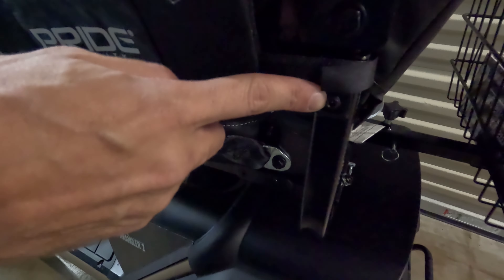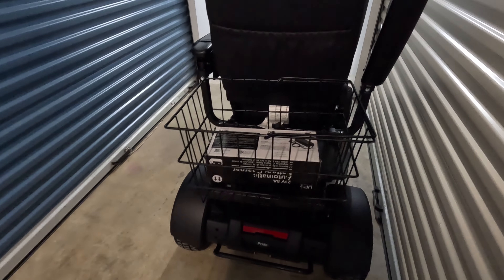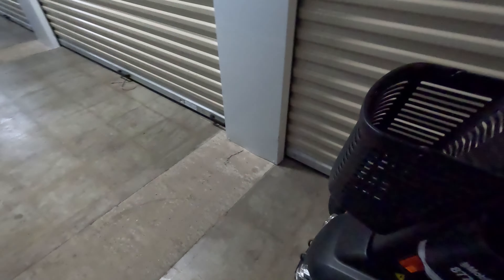This one appears to have set screws for the armrests and the armrest elbows, as you can see. But they don't really appear to work. I'm still waiting on a callback from Pride Mobility — there are technicians about those. In the videos there were knobs, and this one does have a knob for the accessory port. That's about it — everything else up here is pretty much like normal.